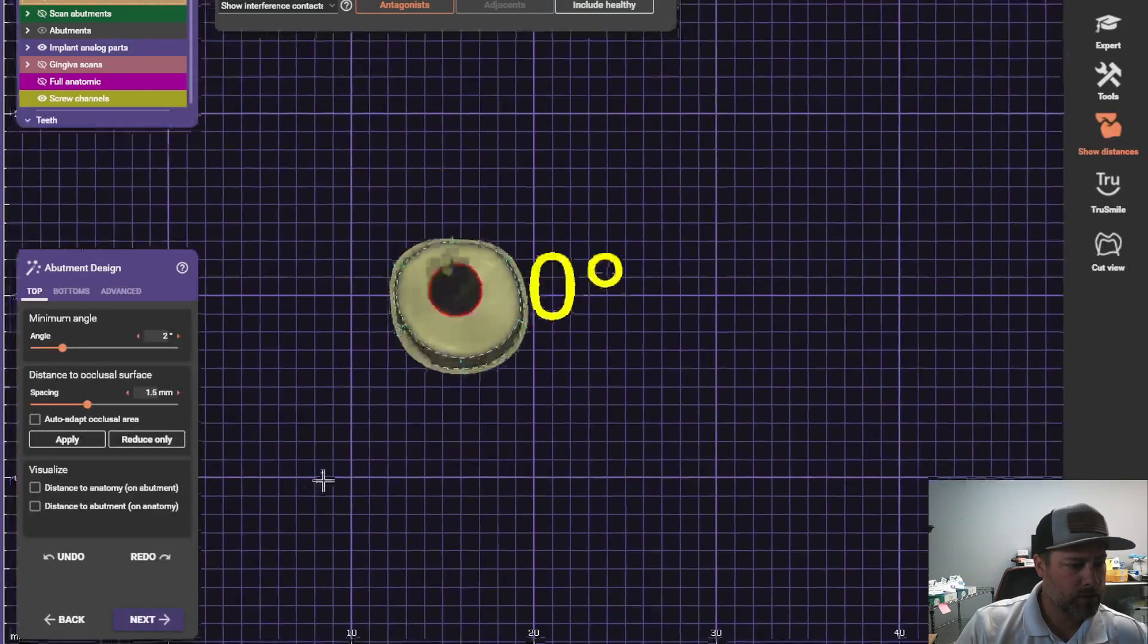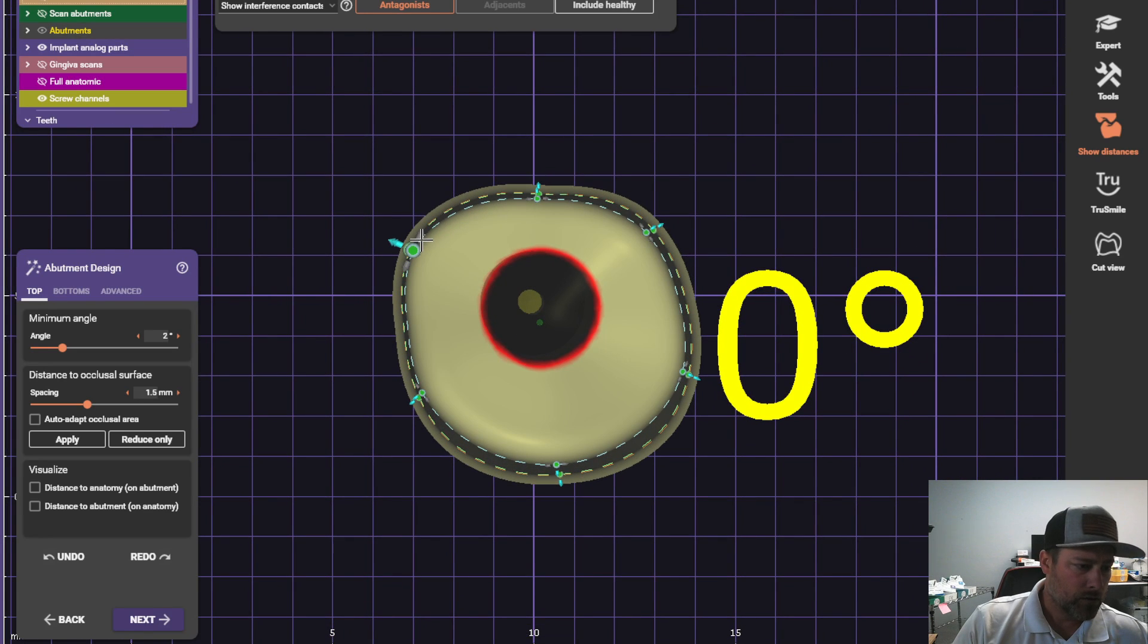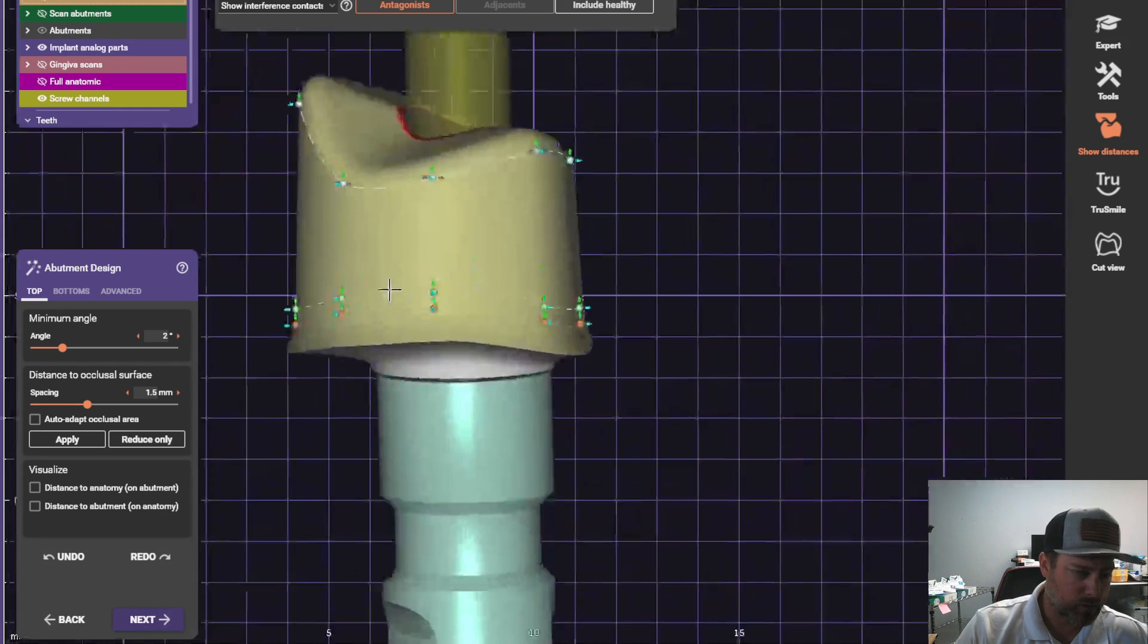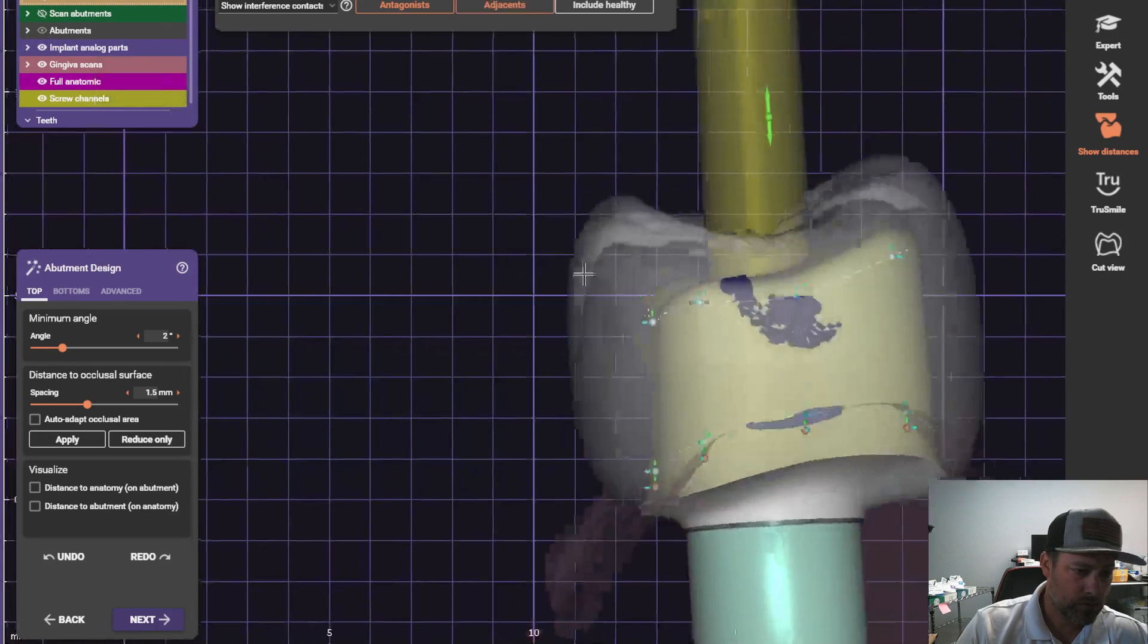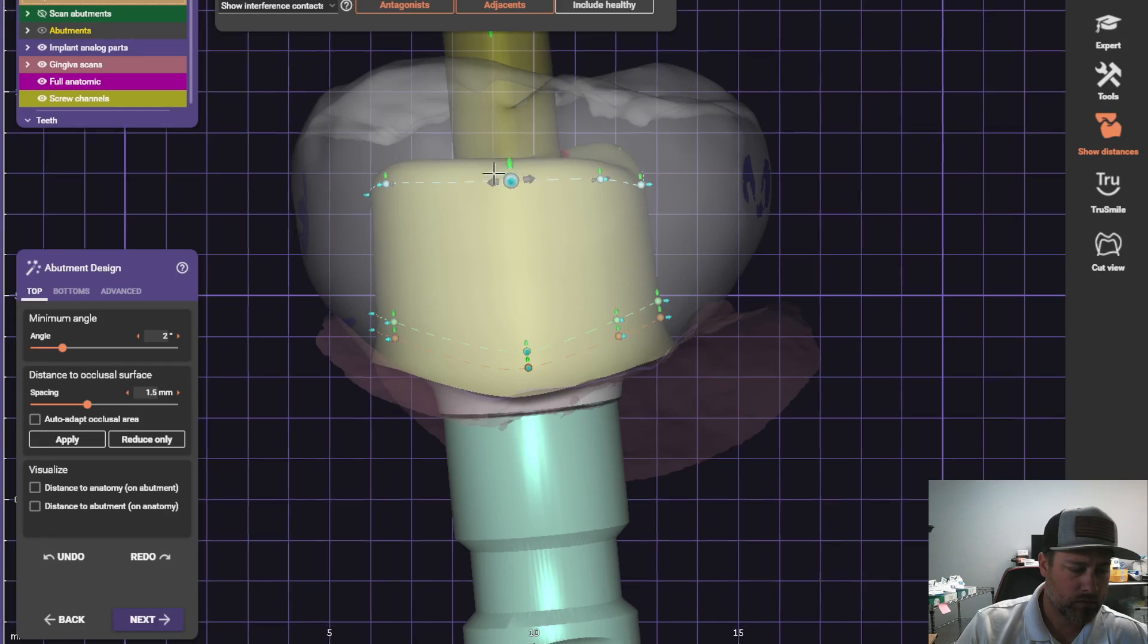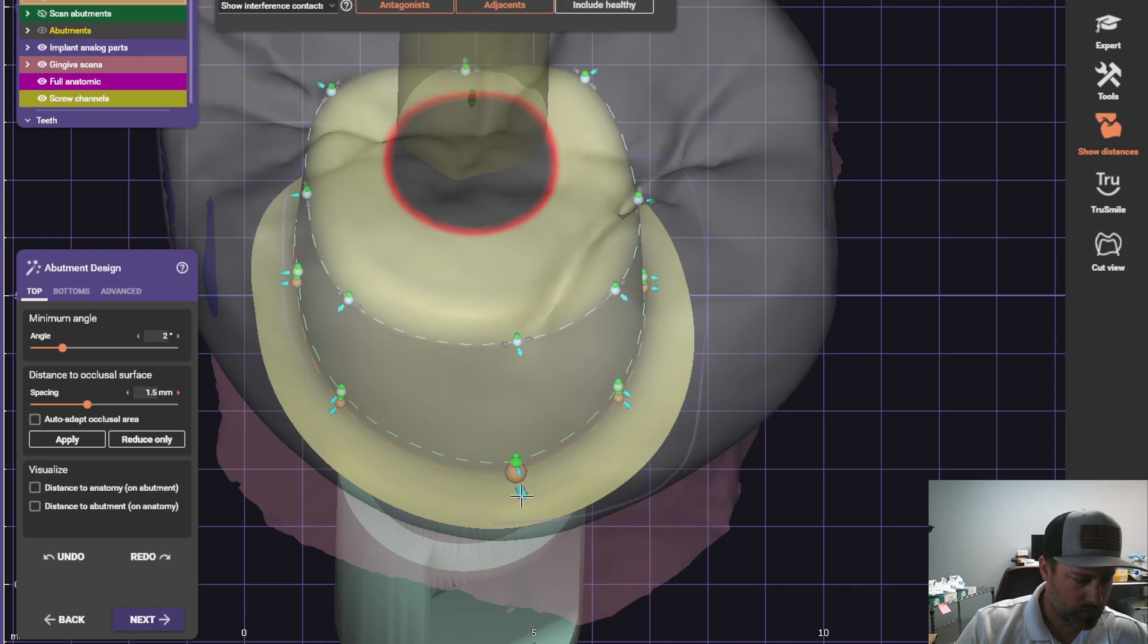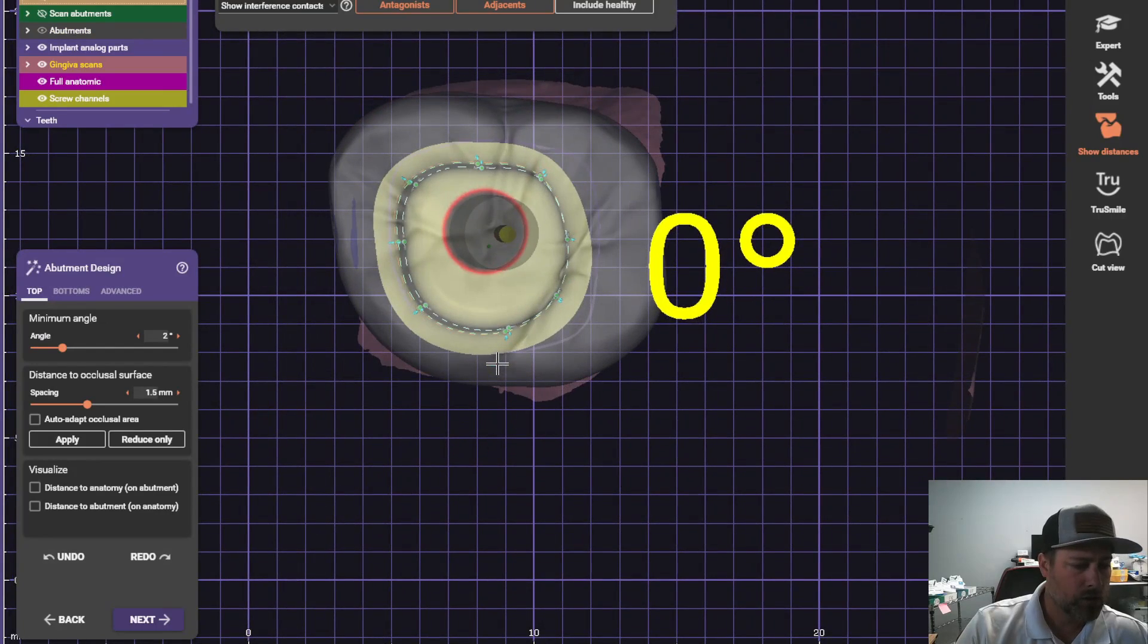Now crown bottom and design. First thing I do is I line up all of my points. I put a point for each cusp. Here. And then I put a point, the mesial and the distal for the marginal ridge. Okay. Let's check this. Drop this down. Okay. Okay. Now I will give myself a nice shoulder. Hold down control. Okay. And smooth. Sometimes you can do this to smooth it up. Nice, even surface. Okay.